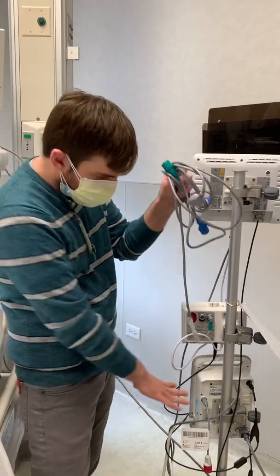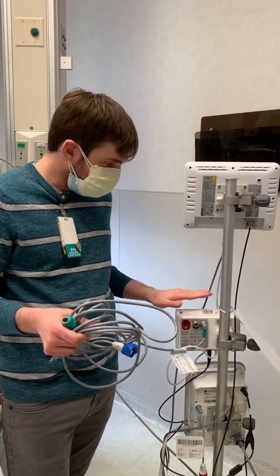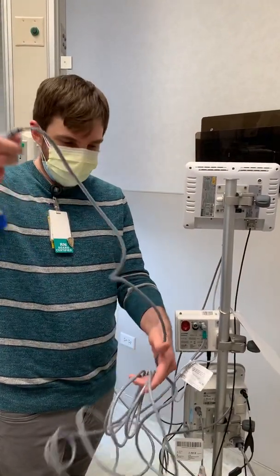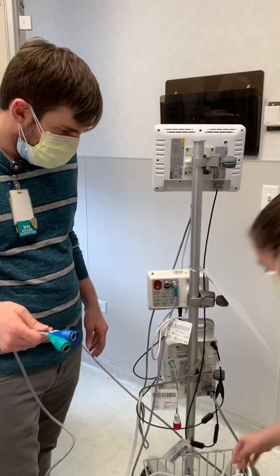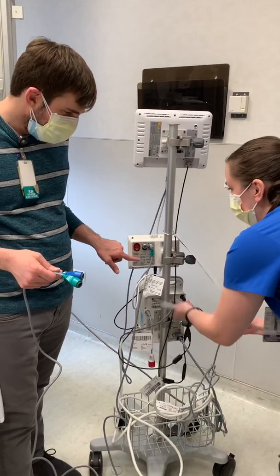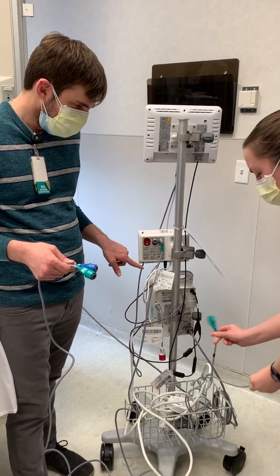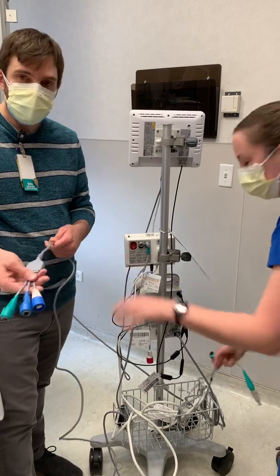If you're not using the finger cuff, don't touch anything here or down. You want this cord because this is the FlowTrack. Just because the last time someone tried to use the EV1000, they were using this round cord and had it plugged in incorrectly. This is the old cord for the old FlowTrack — if you have the single one by itself, it will not work. If you plug it in, you have to use the triple cord.